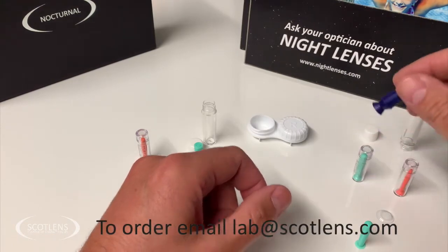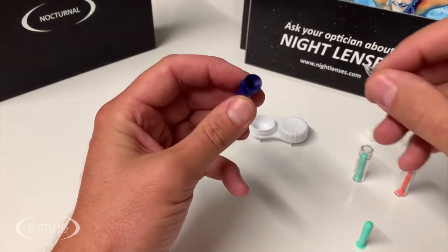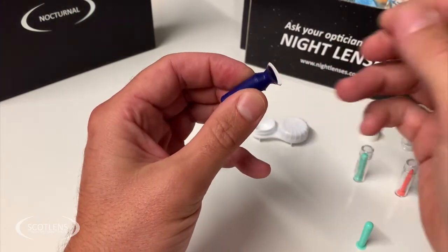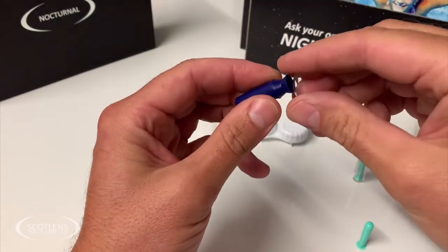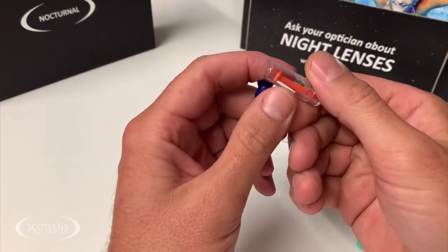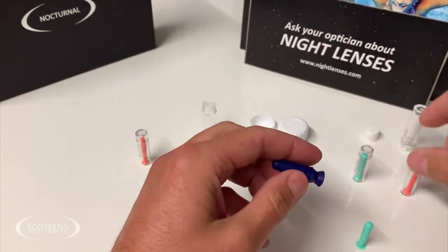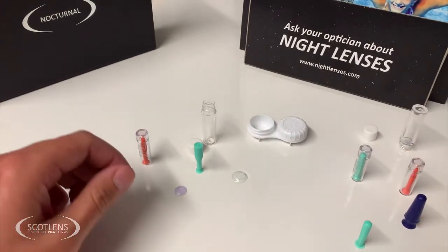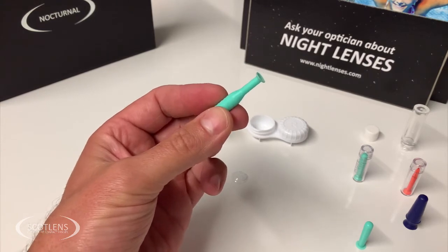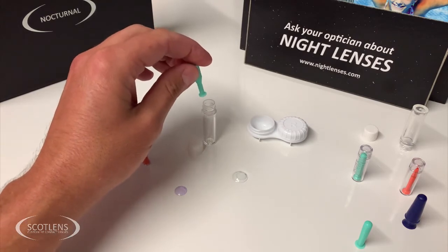There are different sizes — this larger sucker is designed for ocular prosthetics and large scleral lenses, and it's also a hollow sucker so you squeeze it to apply and release the lens. You can also get suckers at different angles if desired, but straight suckers are generally the ones used. To summarize: the solid style is for removal, and hollow suckers are for application of contact lenses.